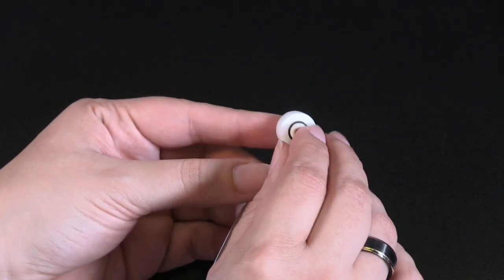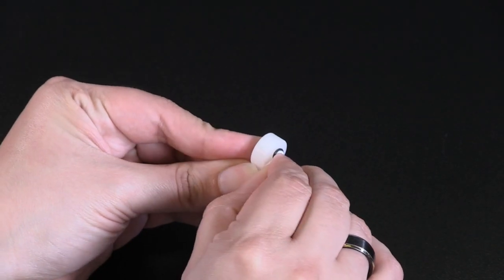To replace an O-Cuff bladder, remove the O-rings and slide the old bladder out of the cuff body.